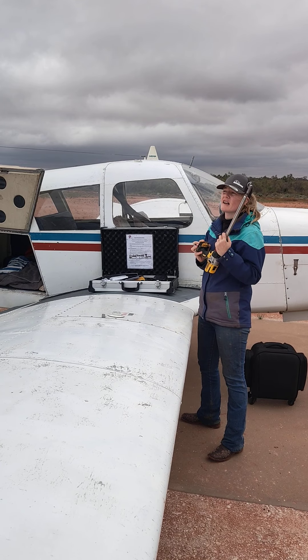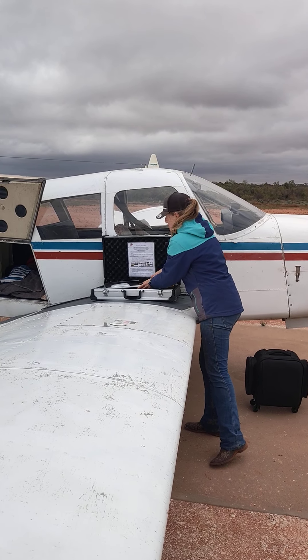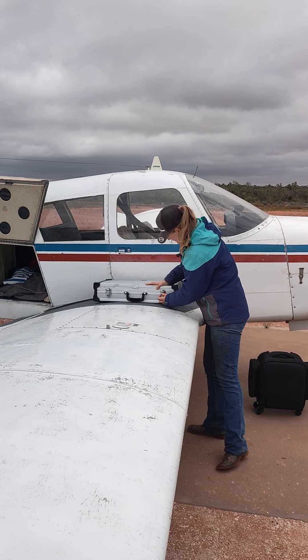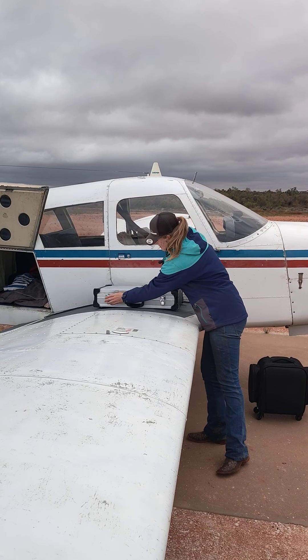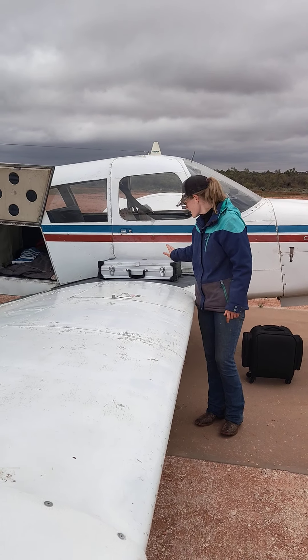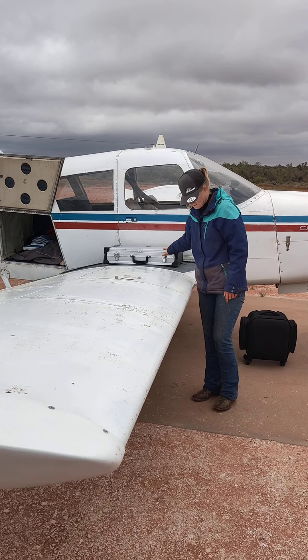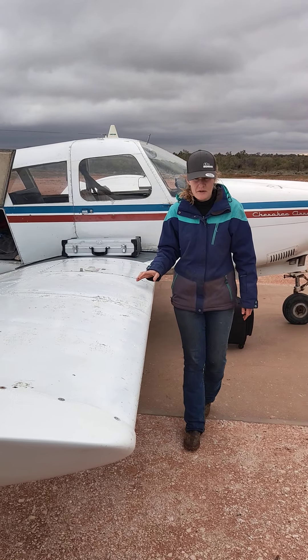So this makes my dentals a lot faster and a lot safer. A special thank you to Southern Highlands Vet for allowing me to purchase that machine off them for also quite a reasonable price, and to Oliver Liu for putting me in contact with them.